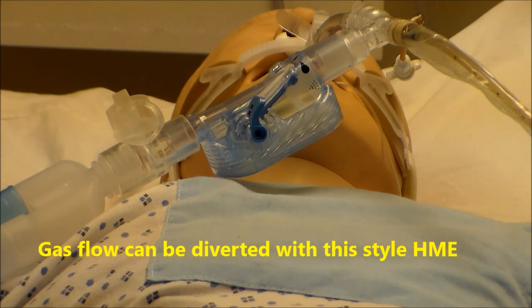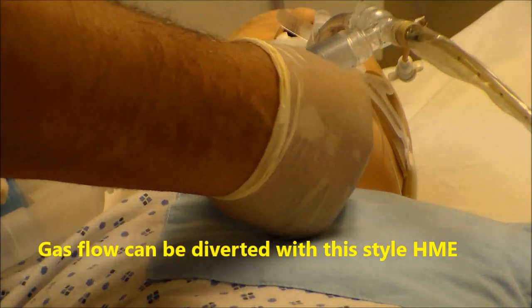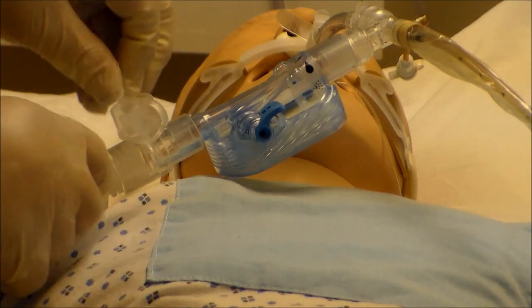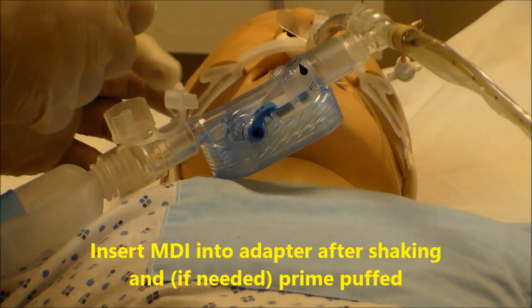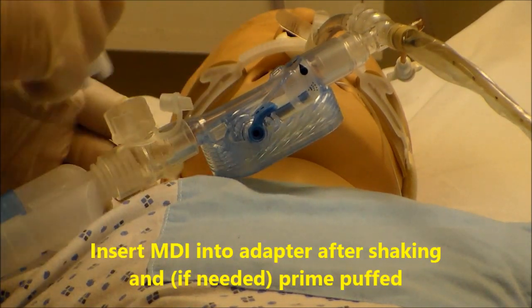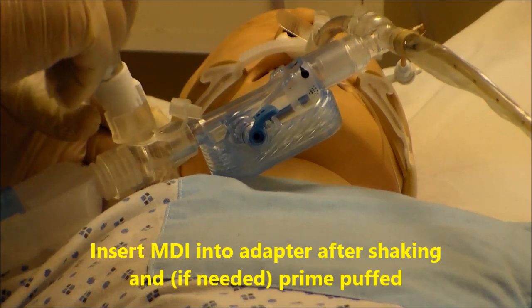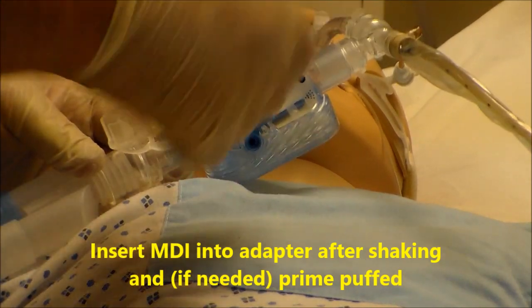Next you want to divert the flow through the HME, then put your medication in the MDI adapter. Make sure before this you would have shaken it and primed it.